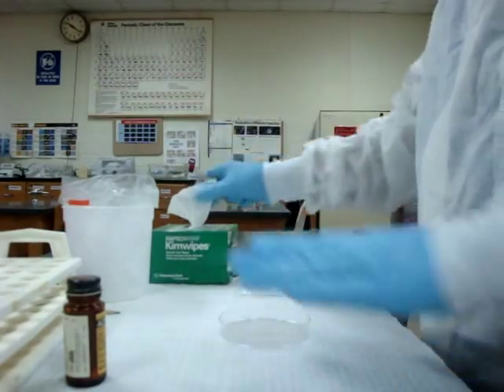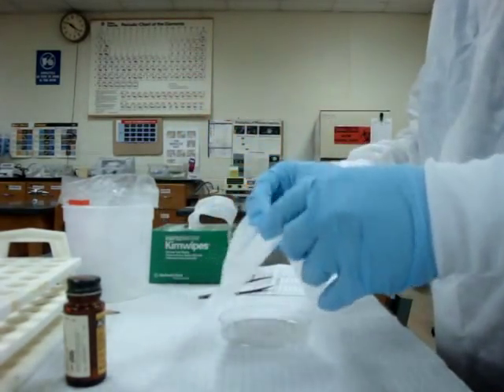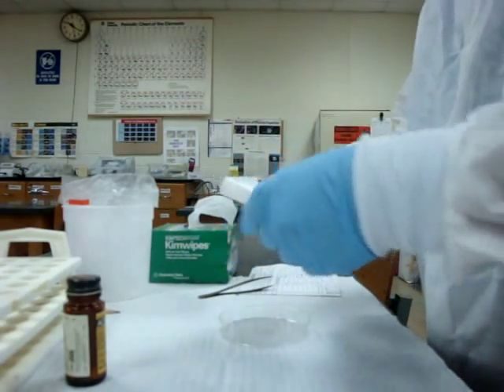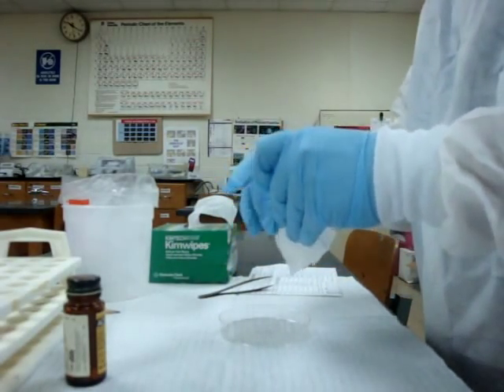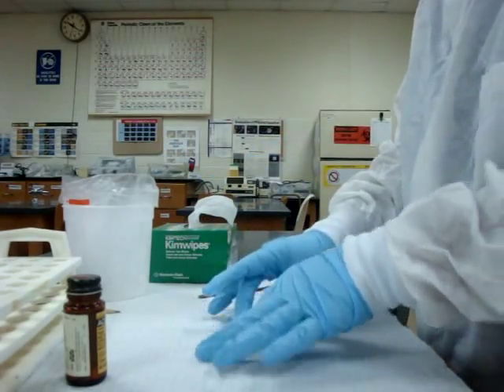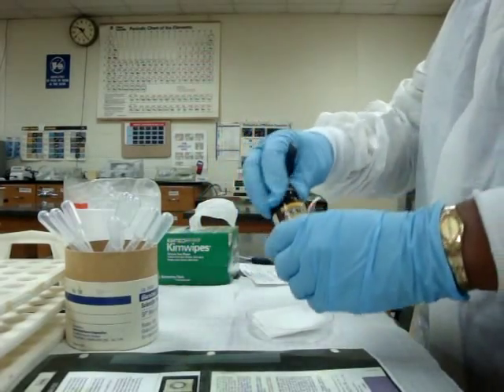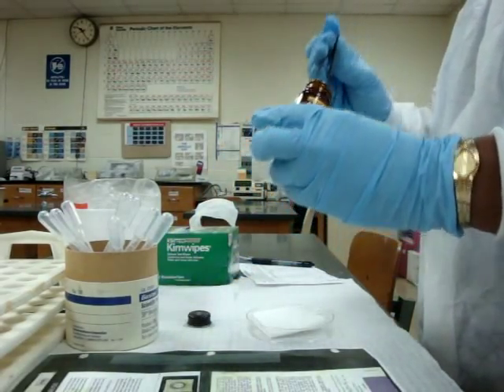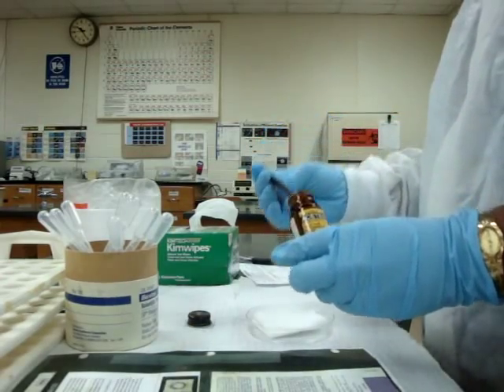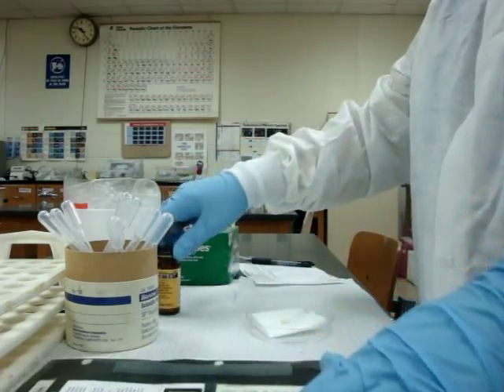Now I am going to start the test. First, I take a clean dry piece of Petri dish and place a folded kimwipe on it to avoid contamination of my working table. Then I am going to take a tablet from the Acetest bottle using a clean forcep. It is important to remember to recap the lid.